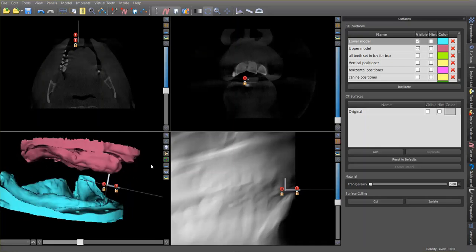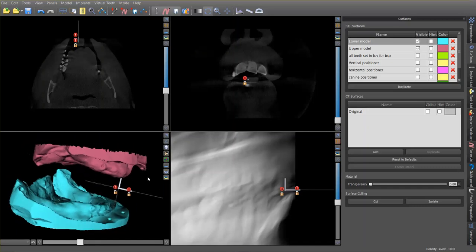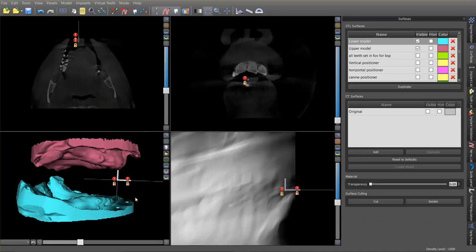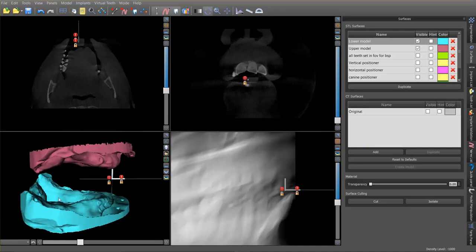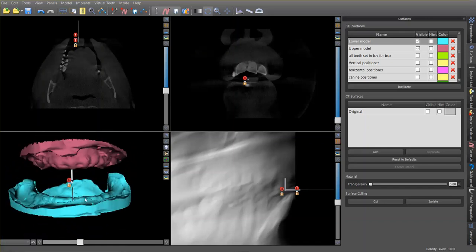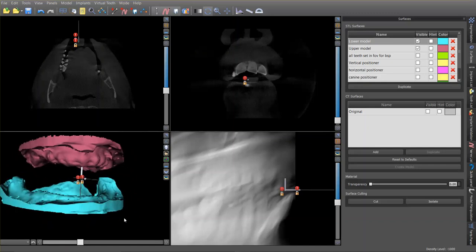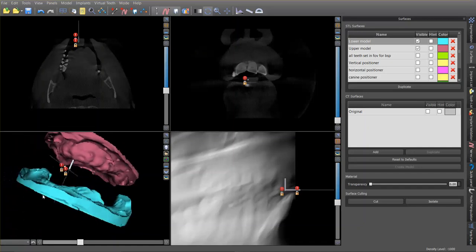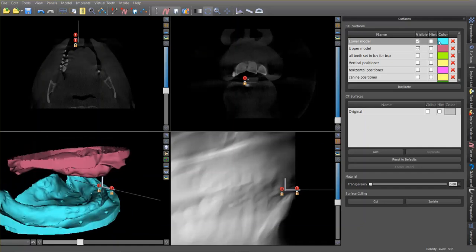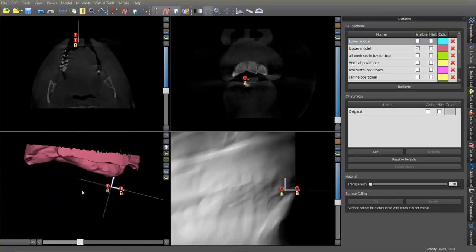I wanted to give a quick demo of what we're doing in the digital denture realm with Blue Sky Plan. This will be available within a few months, and there's already a lot of the functionality there — it's just a matter of streamlining and automating it. I've got a couple of digital edentulous models here. You could get these by scanning some casts or cone beam scanning some casts, but in any case they're already articulated in the proper orientation. Let me turn a few things off. The first thing we need to do is define where we're going to put the central incisors.